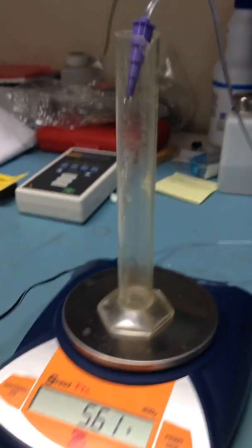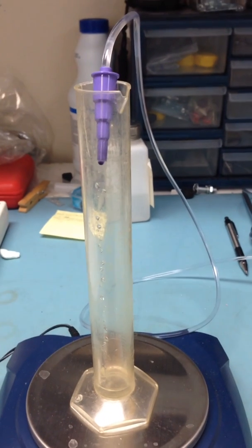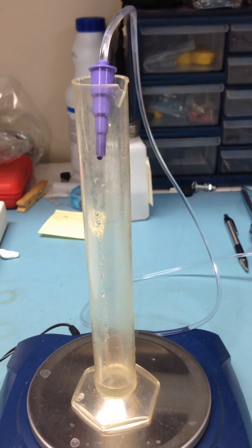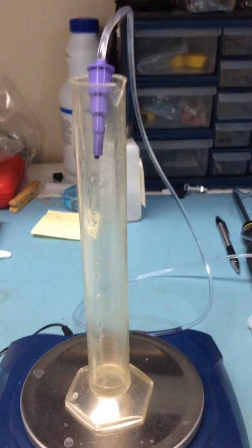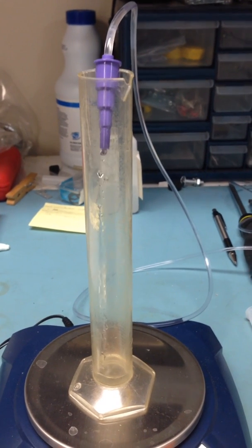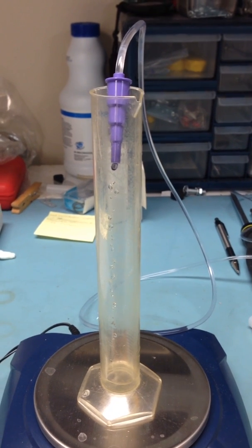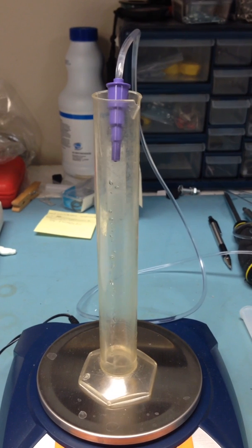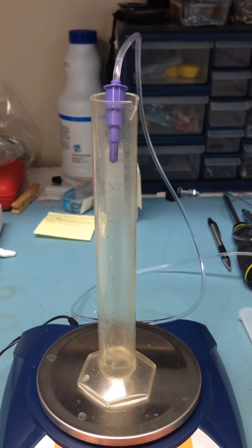This is where we're going to measure the amount of milliliters coming out of the feeding pump — make sure it's accurate and giving the right amount of food to the patient. That's going to be part one. In part two, we're going to see the results when everything's done.